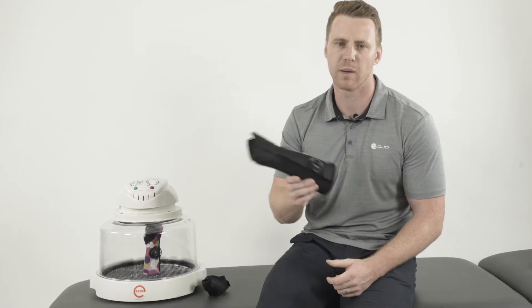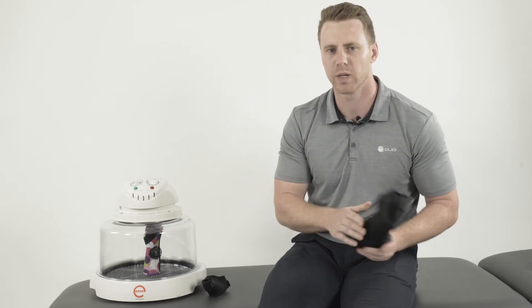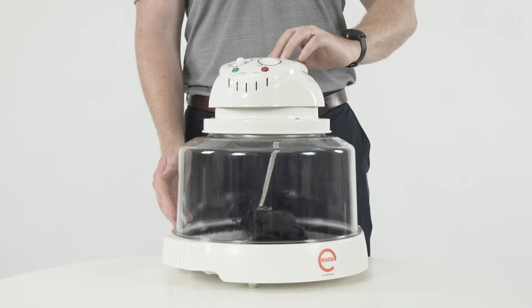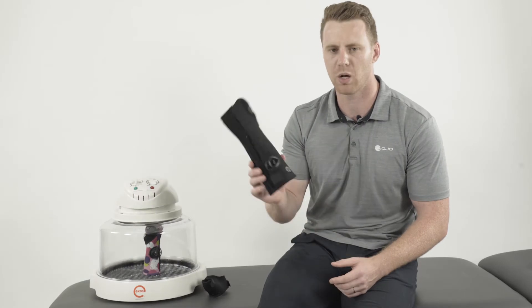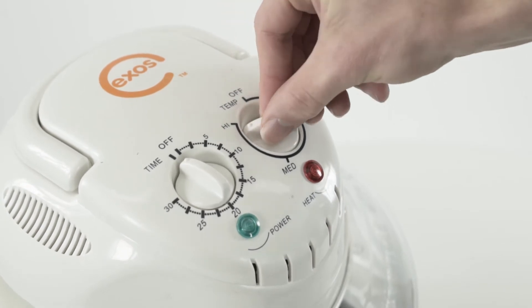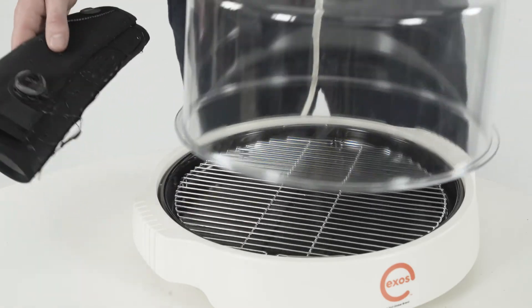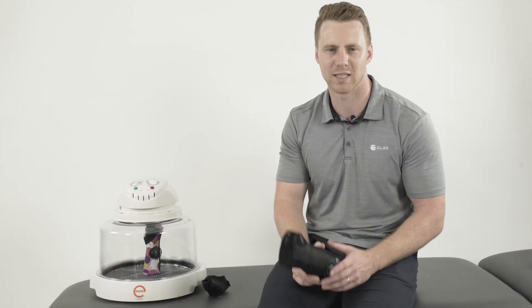For the practical application of heating the braces and moulding them to your patient, we can provide your clinic with one of our special Exos ovens. This is a convection oven that uses dry heat. Turn the temperature up to high, back it off slightly, and heat the brace for approximately five minutes. I always recommend letting the brace cool down for about 10 to 15 seconds before applying it to your patient.